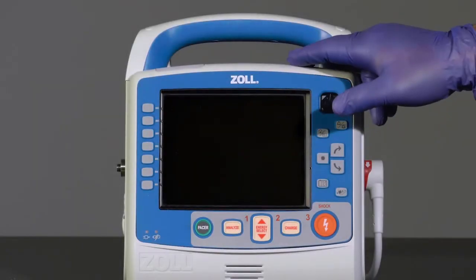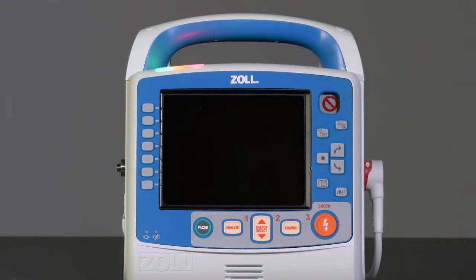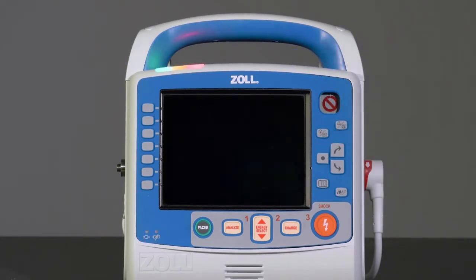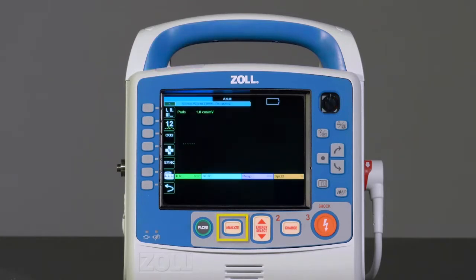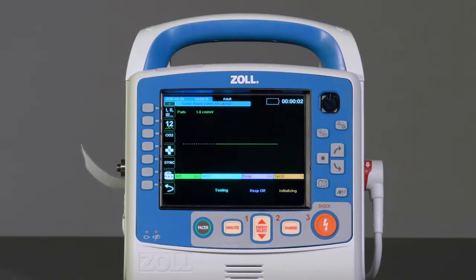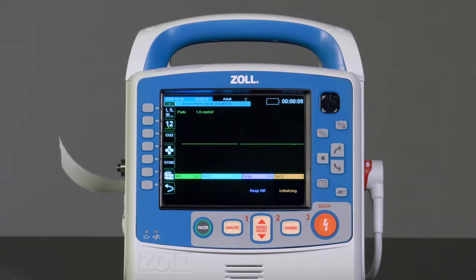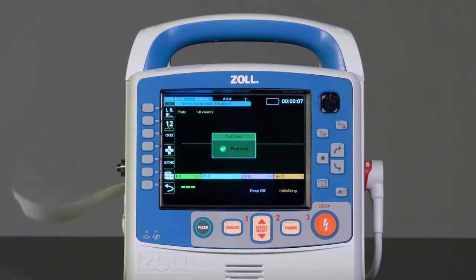If the X-Series Advanced is configured for analysis CPR protocol, selecting the analyze key will activate that function and cause the X-Series Advanced to enter AED mode until converted back to manual mode.